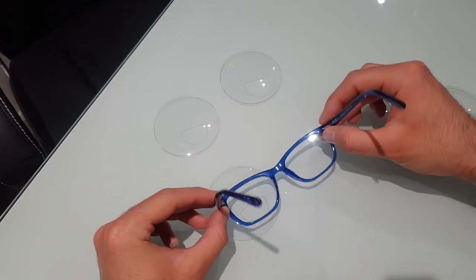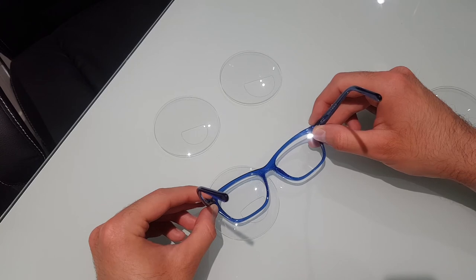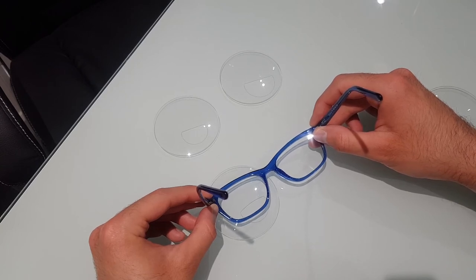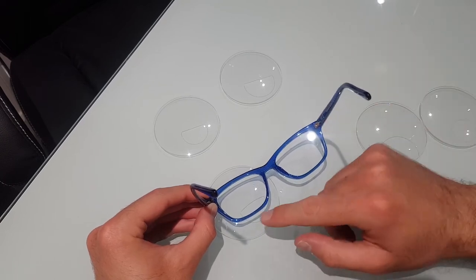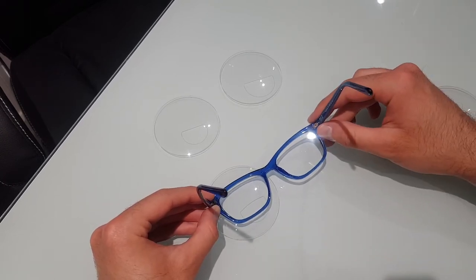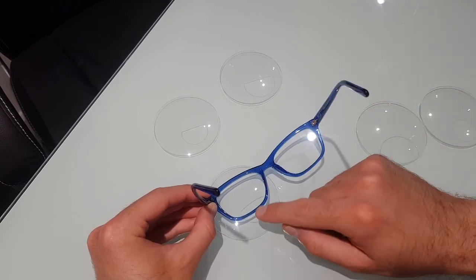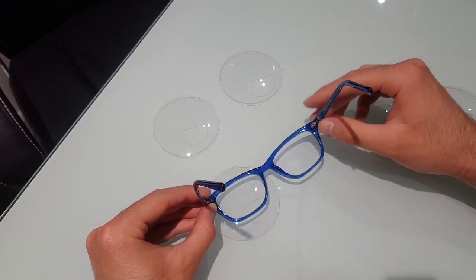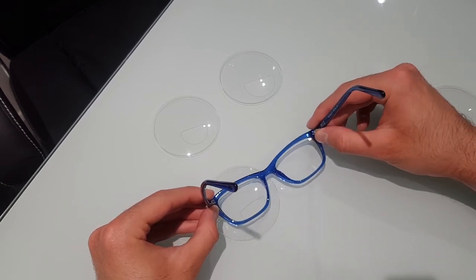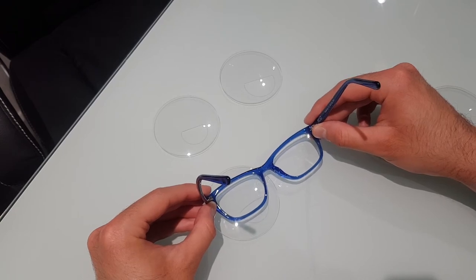It's actually the same way with a curved top. That's where it would probably sit in the frame. You could say to somebody, like an optician, actually my last pair, I felt there was too much reading area. You felt it wasn't comfortable for you. So we can raise the heights a little bit and then decrease that. We can go from having a lens that's got quite a big reading area and reduce the heights down to something more discreet.